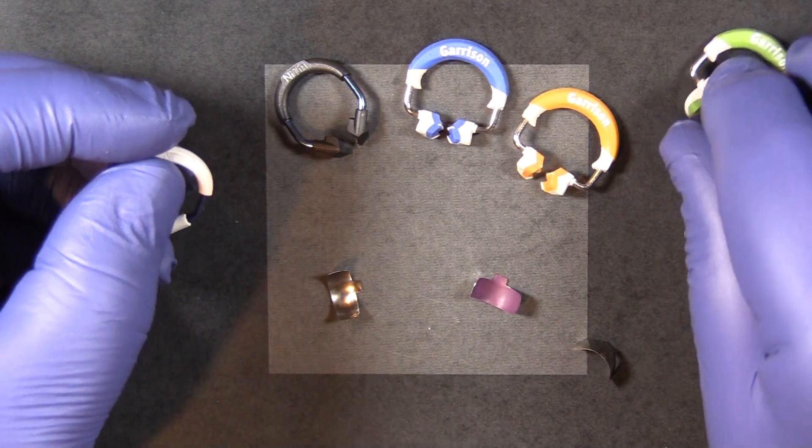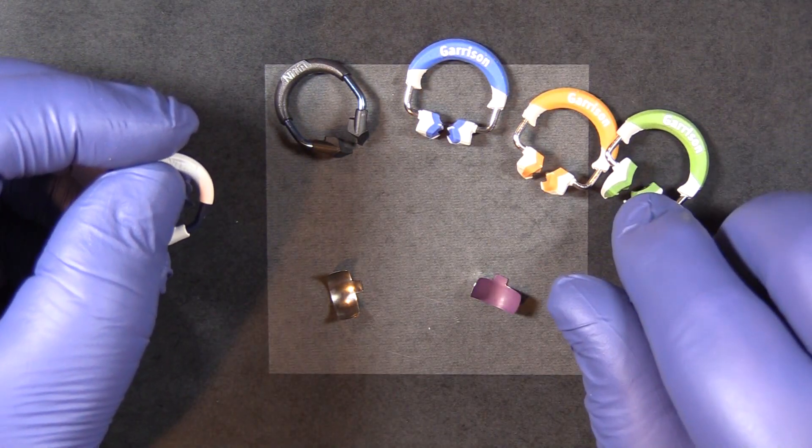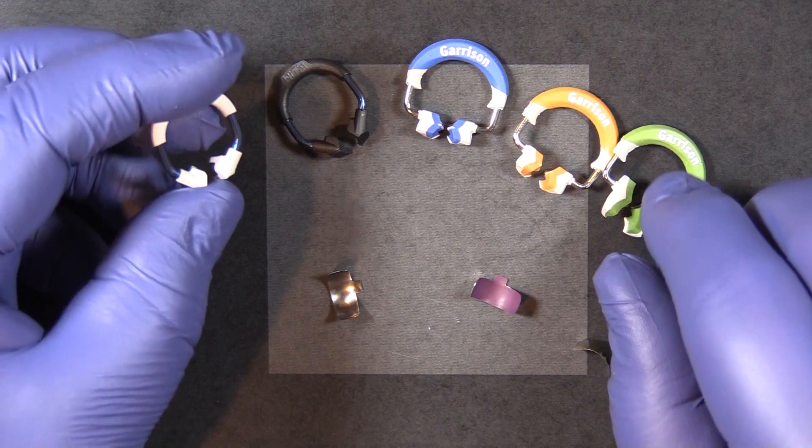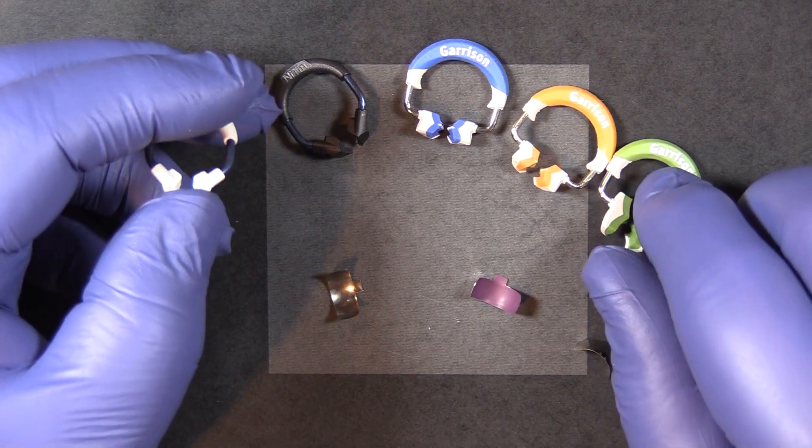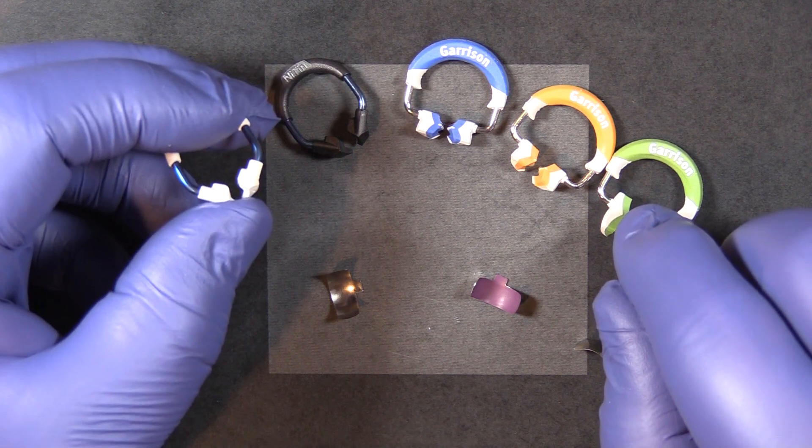The 3D Fusion system does have the wide prep ring that is unique to the Fusion system. It's the only ring like it anywhere and it does a fantastic job if you have a really wide prep.